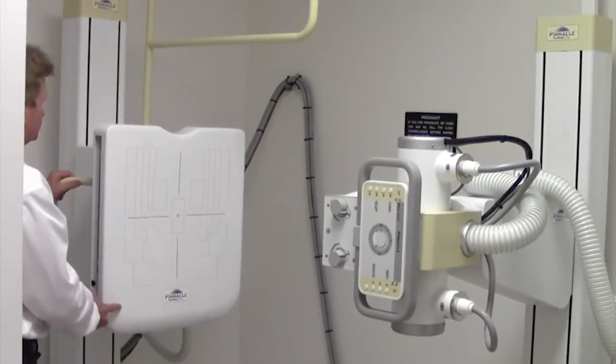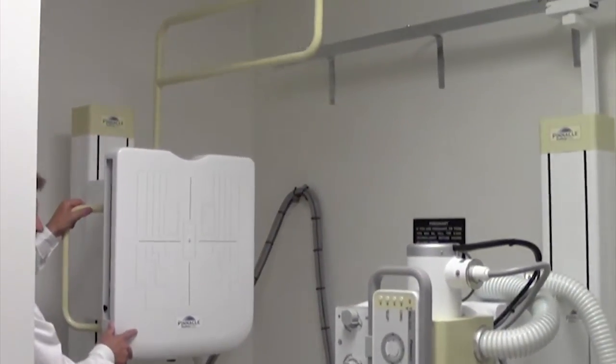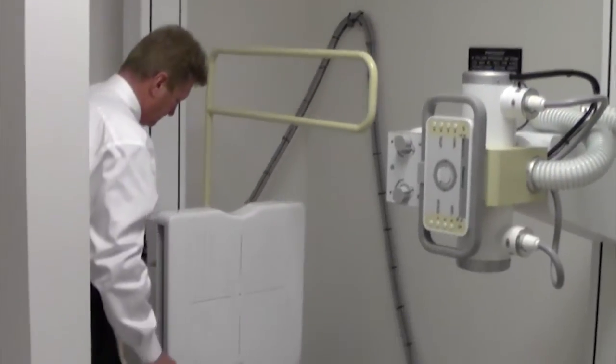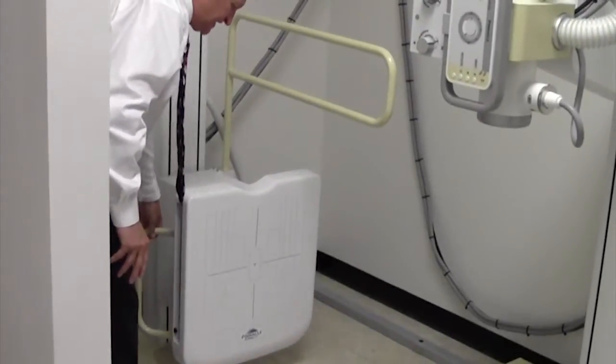And again, it has a good amount of travel for cervical imaging all the way down to standing knees.